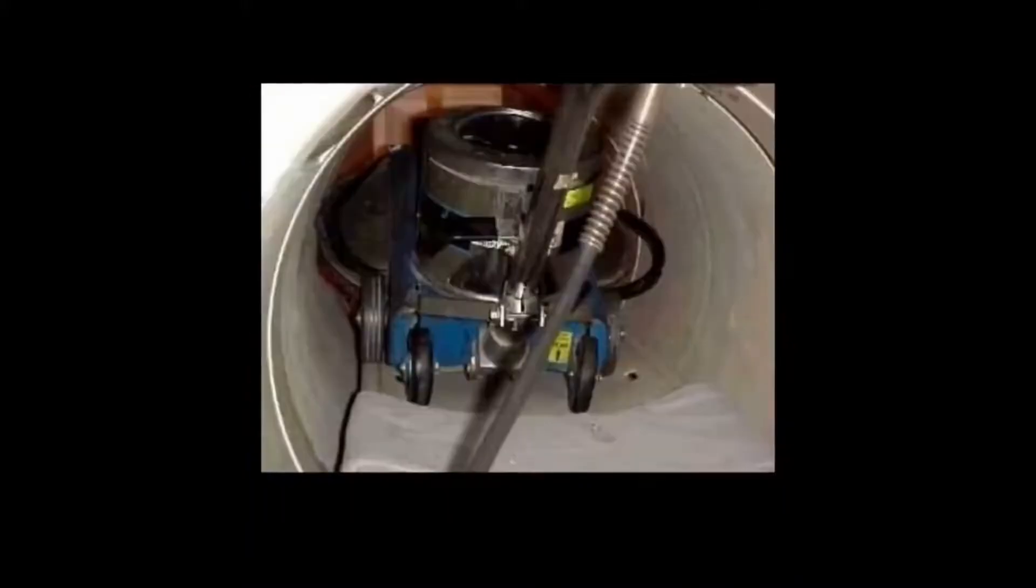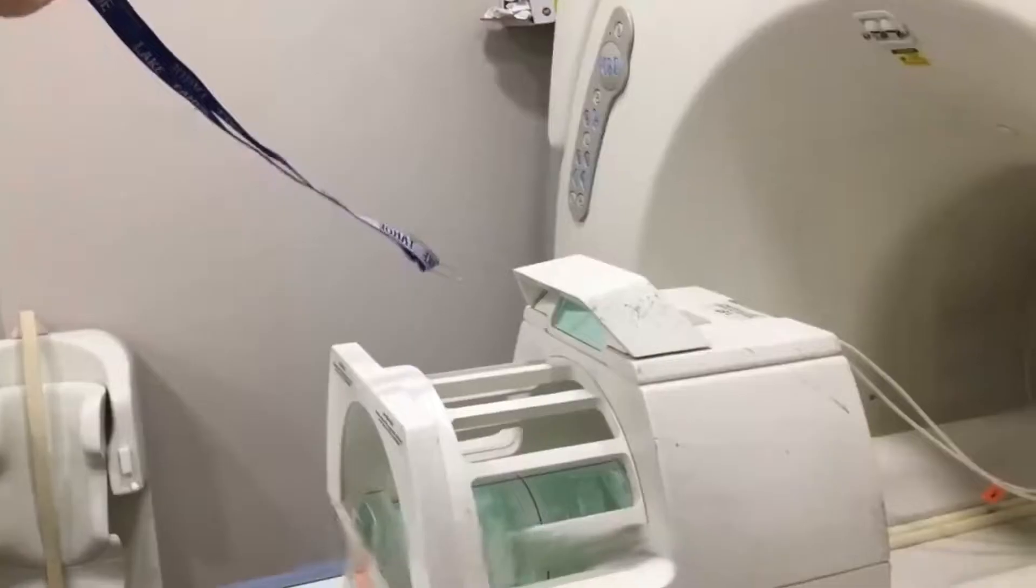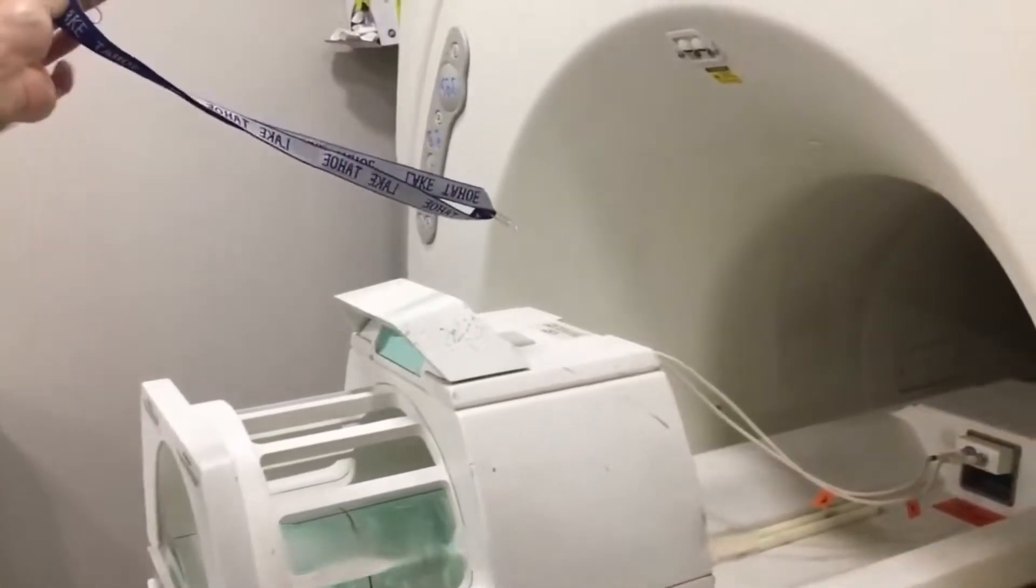Wheelchairs, vacuum cleaners, oxygen tanks - any object containing metal that comes near it will be sucked into the MRI.